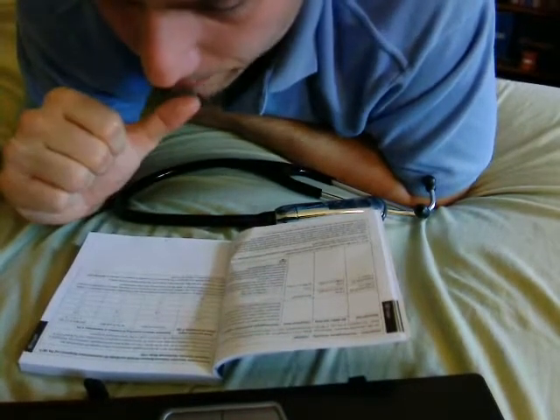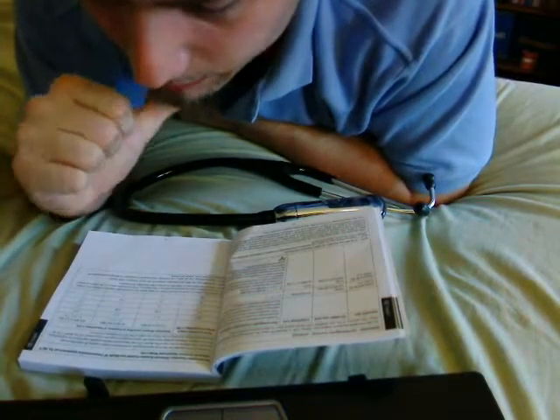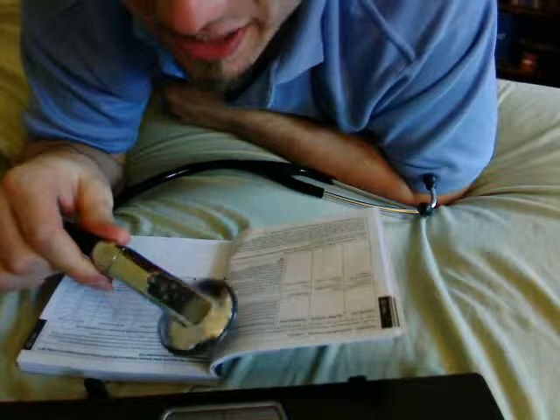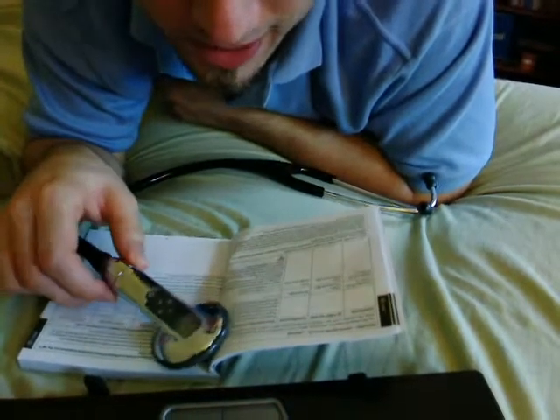Your cell phone looks like it doesn't require too much separation distance — just keep your cell phone in your pants pocket when you're using your stethoscope so it doesn't interfere. Again, interference rarely ever happens, and even if it does, you probably wouldn't notice.